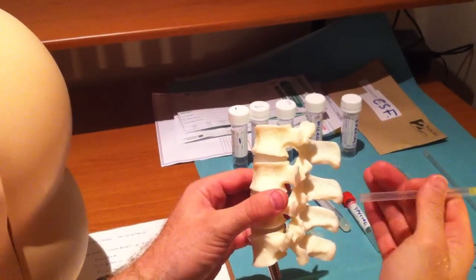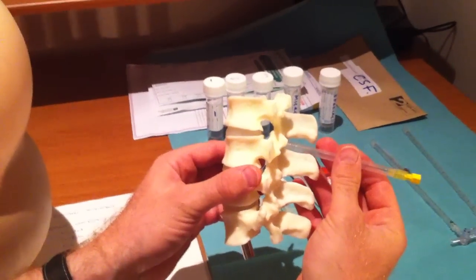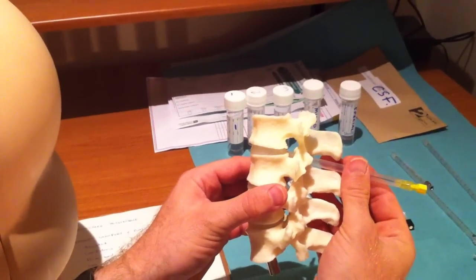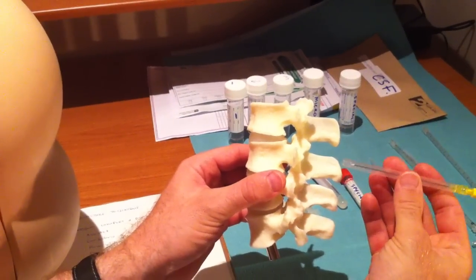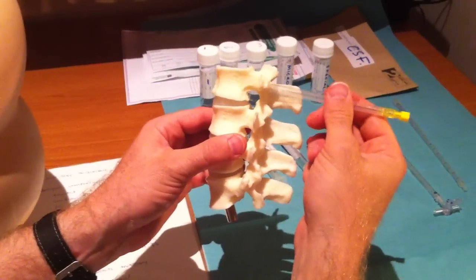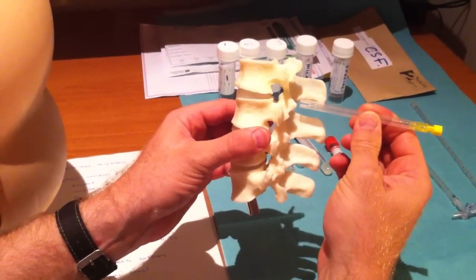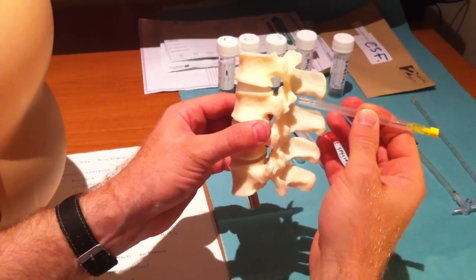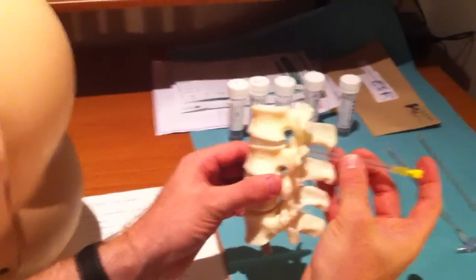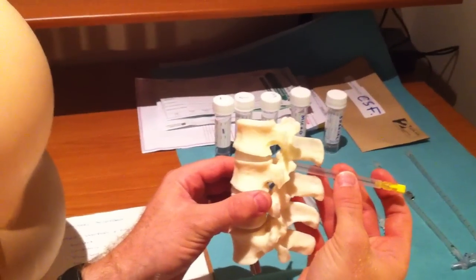If you know the anatomy and can direct the needle between the spinous processes, as long as you don't come into contact with bone and keep aiming, you will eventually hit CSF. In most adults, the ligamentum flavum — the tough ligament that lines the back of the spinal canal — is on average between one and a half to two and a half inches from the skin. So with a three-and-a-half-inch needle, it should be going somewhere between 50% to 66%, or two thirds of the way in, before you get CSF.